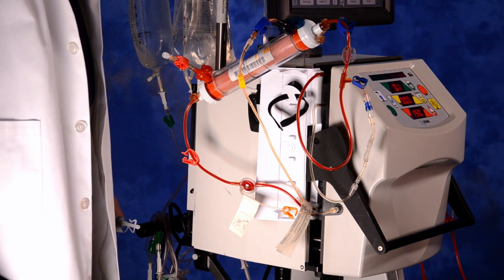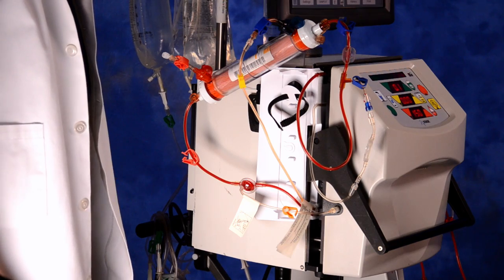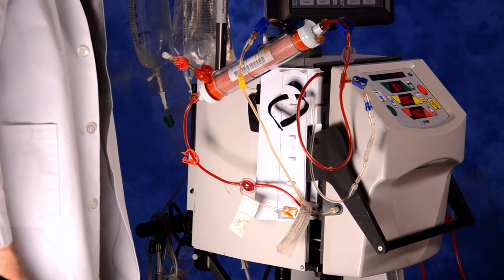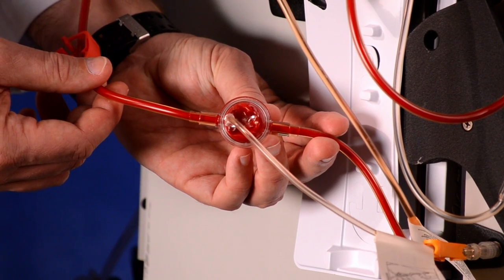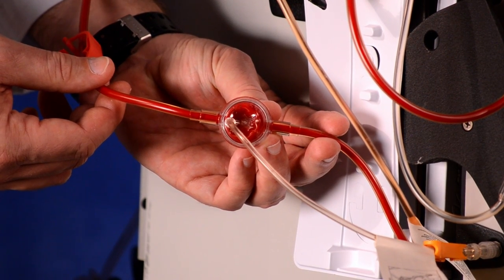Verify the filter pressure on the one view is within normal range. Also verify that the filter pressure pod is full of blood with an arched center fluctuating with an indentation around it.